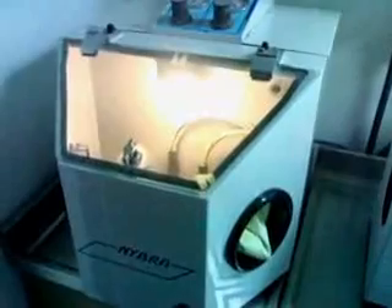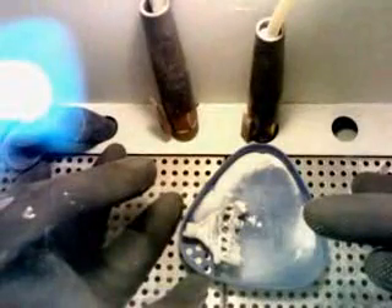I'd like to introduce you to my sandblaster, which draws very dry air because we use a dry unit compressor. In the prep room we also have a system to keep the air dry for this sandblaster. Here's the gauge — it goes through the wall on the other side. Whenever I walk into a lab, the first thing I check is the condition of their sandblaster. I always keep mine very efficient — it's very important that your sand is clean and everything is working nice. We'll be hearing a little bit of noise during the sandblasting.